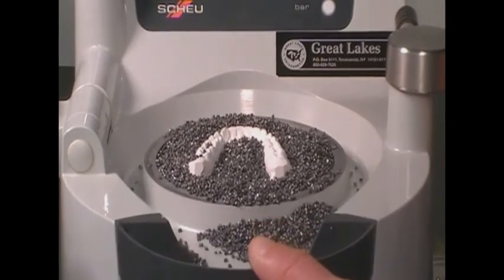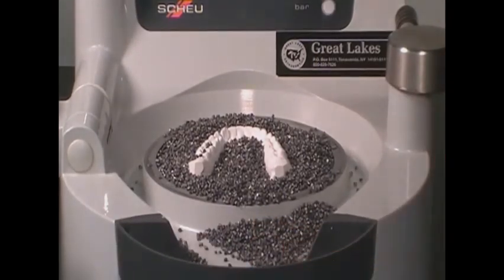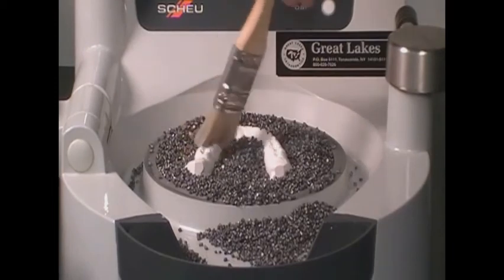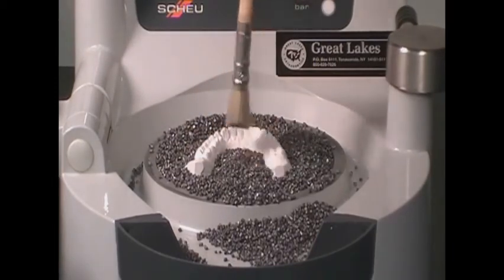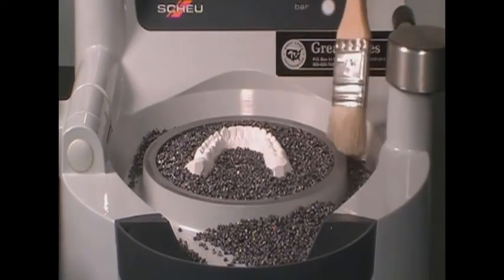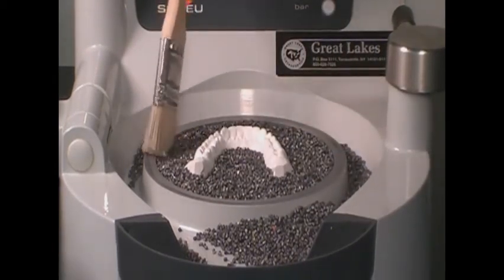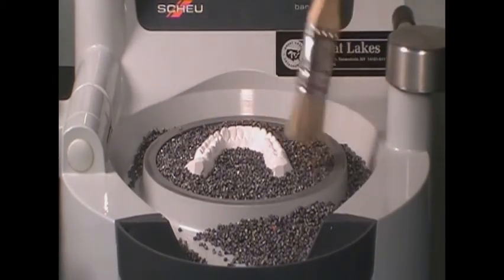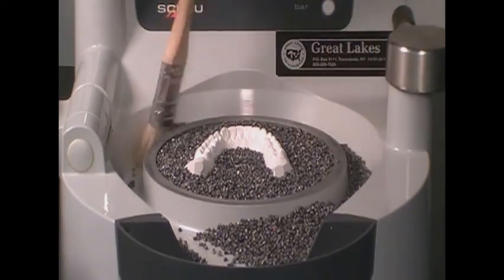With a one-inch brush, level the pellets from the model to the rim of the cup. Excess pellets will be held in the channel around the cup. As needed, sweep excess pellets into the drawer on the front of the machine. Make sure there are no pellets resting on the rim of the cup when finished.